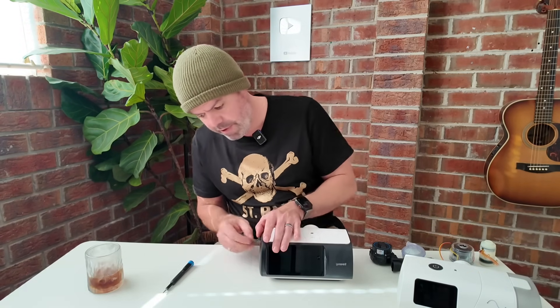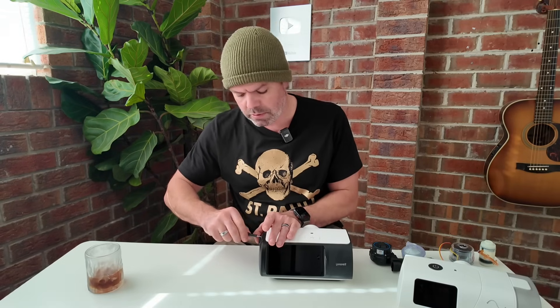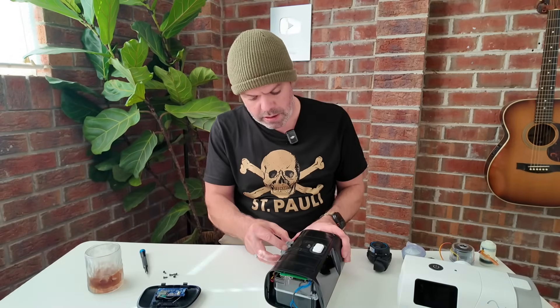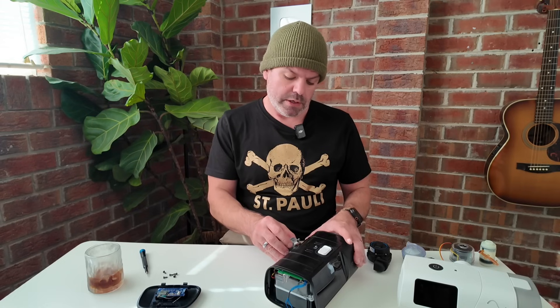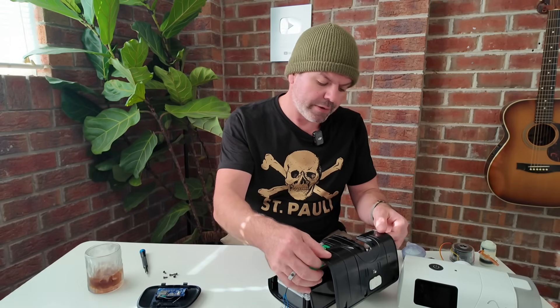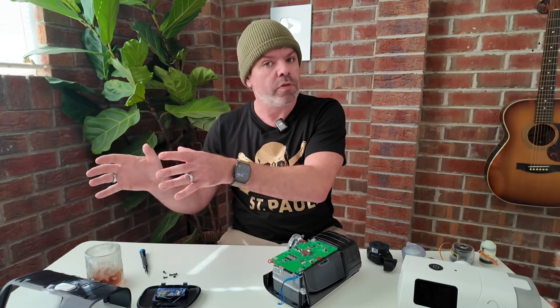Now, this company here — I've been digging around a little bit because it seemed like they popped out of nowhere. All of a sudden they were all over my LinkedIn feed and attending fairs all around the world. They've actually been around for about 30 years, so they're quite big over in China. When I first got this device, I reached out to one of their reps — an Indian rep — and the price was like $200 US wholesale. I've been chatting with my mates over in Canada and they said the wholesale price there is $500 Canadian. The retail is probably around $1,000 here in Australia, and around $1,200 in Canada. So certainly at the lower end of the price range when it comes to CPAP gear.